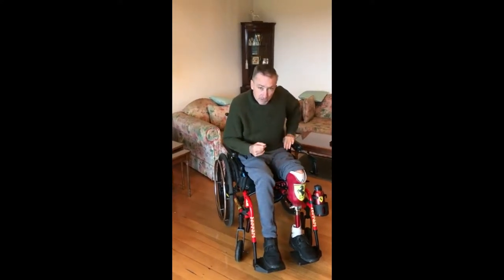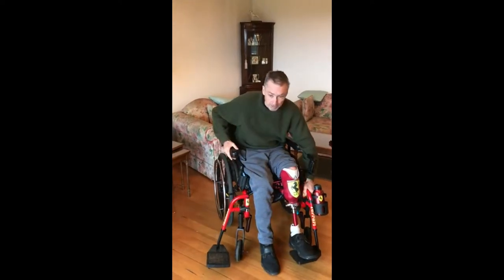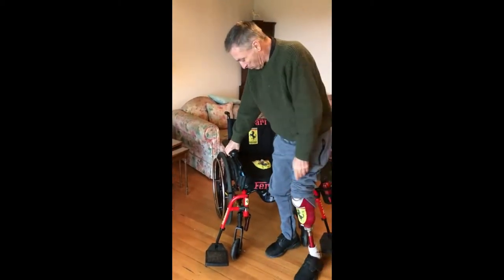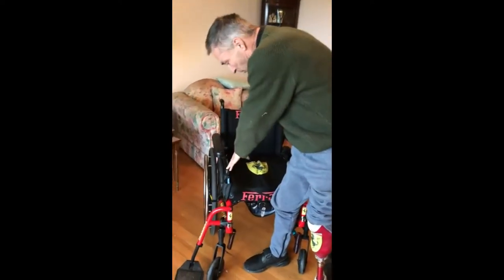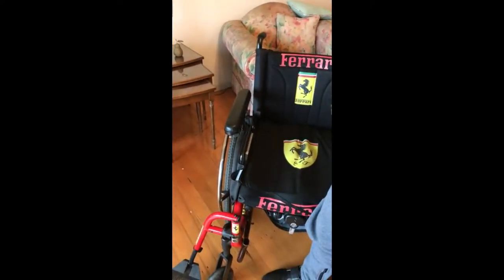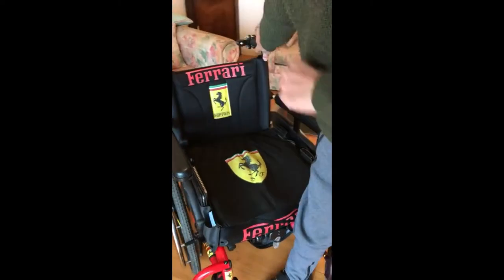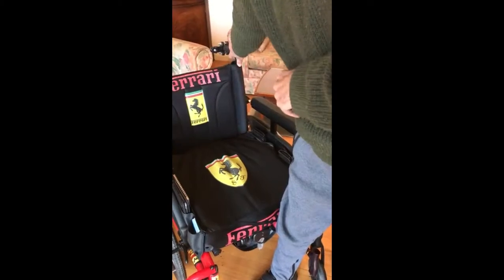I'm going to start pulling my chair apart but in the meantime I'm going to show you what it looks like. My brakes are on and I can transfer — I will for one step only. What I've done here on the chair, and I do need it for balance, is I've put pockets on the side of my cushion. They velcro to the cushion so they're permanent and removable.